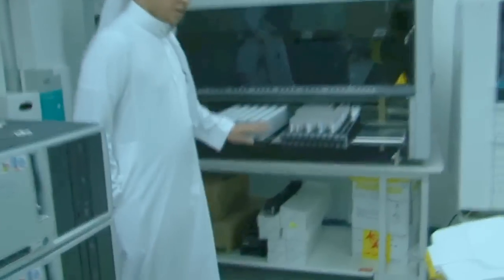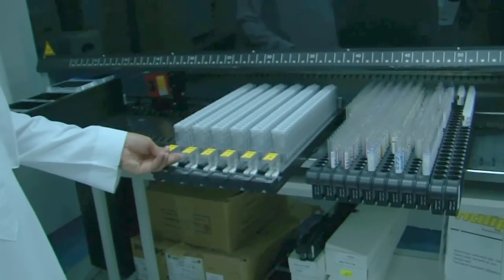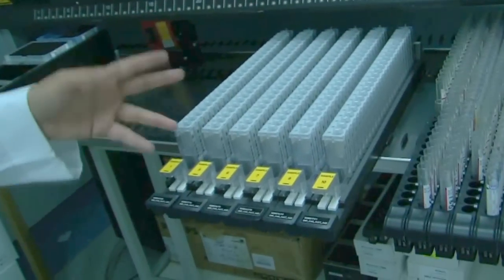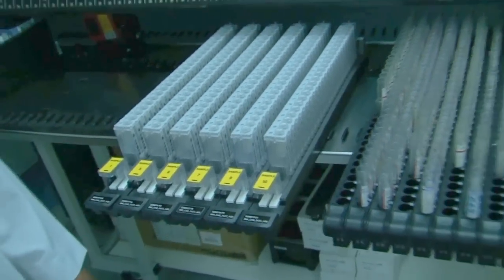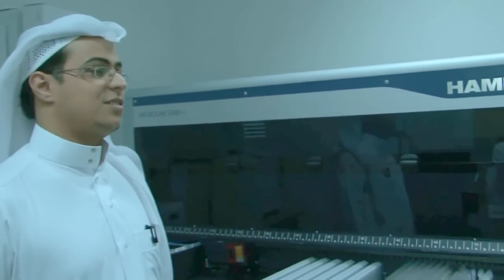So if you have your sample positive, that means 100% positive. You will not have a false positive or false negative. How many samples do we usually take? I have 6 racks. Yes, this is 3 batches, 6 racks. Okay, 126 samples. Too much, mashallah. Yes, too much. It may take from 9 to 10 hours to get all the results. Very nice, thank you very much.